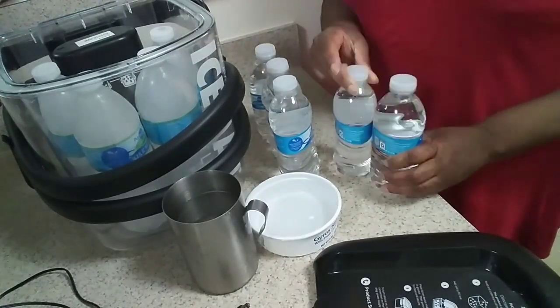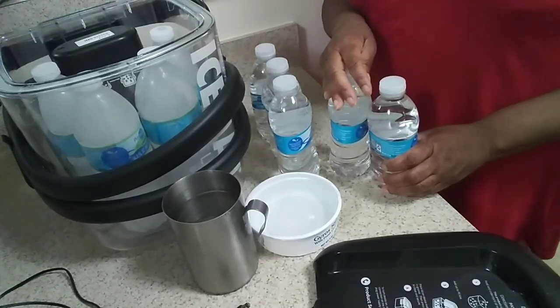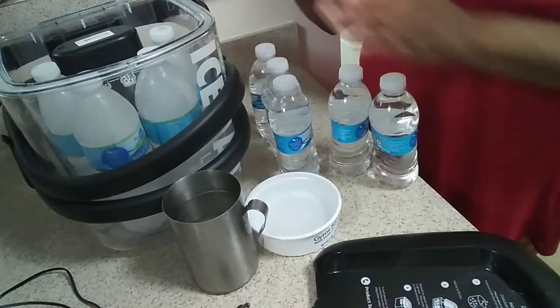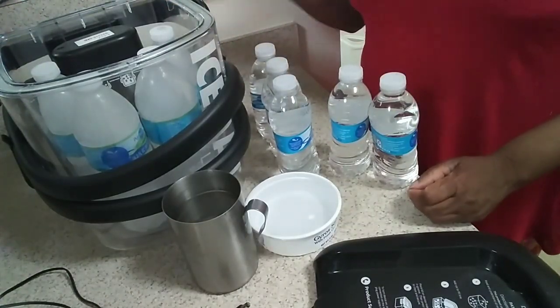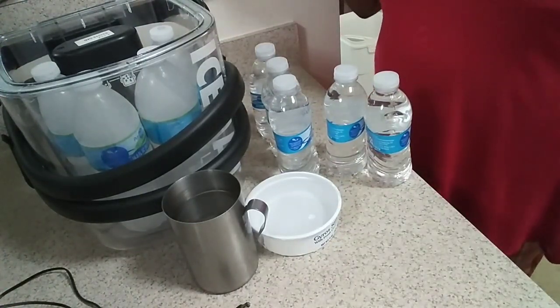At the same time, around when my son got his surgery done, it was reaching almost close to a hundred degrees here. And the water coming from outside that I was using to fill this up was kind of on the warm side, so of course it was going to make that ice melt even faster.